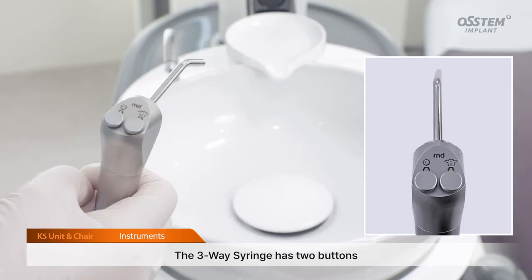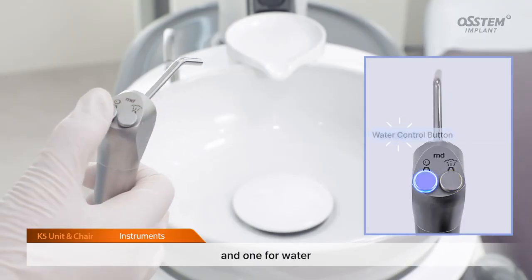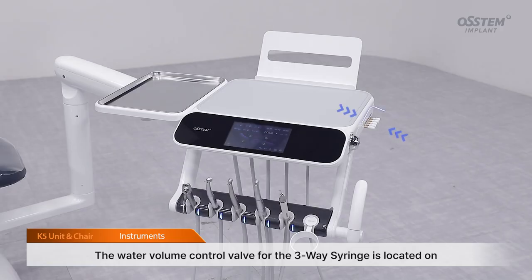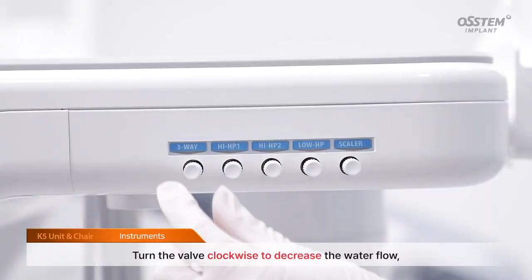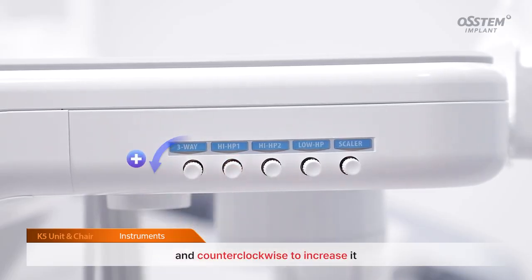Instruments. The three-way syringe has two buttons, one for air and one for water. Each can be used separately or pressed together to create a spray mist. The water volume control valve for the three-way syringe is located on the right side of the doctor table. Turn the valve clockwise to decrease the water flow and counterclockwise to increase it.